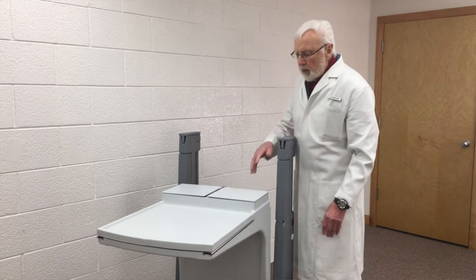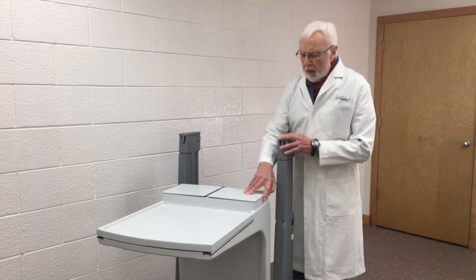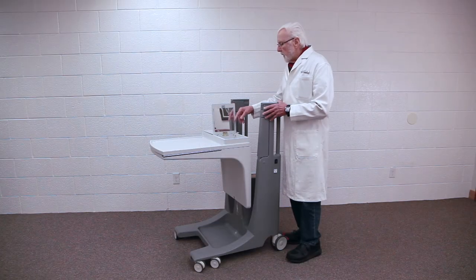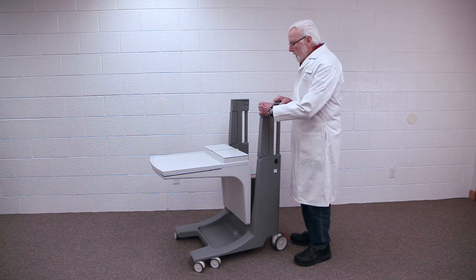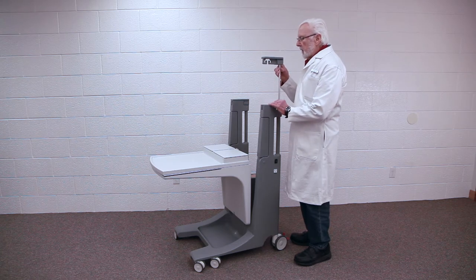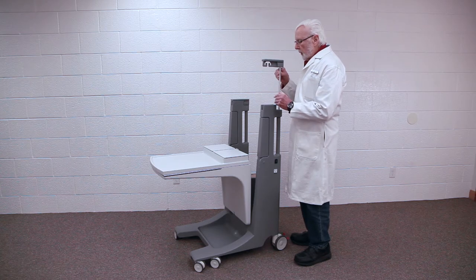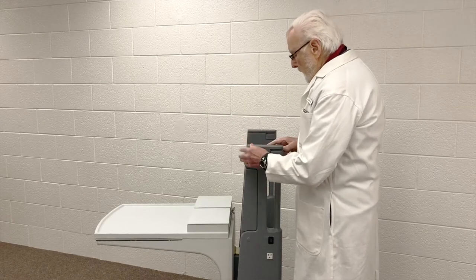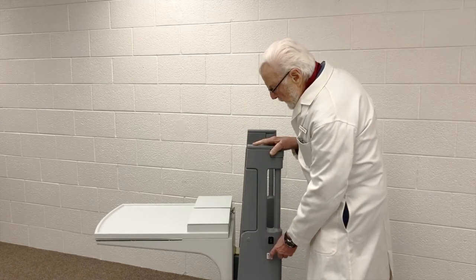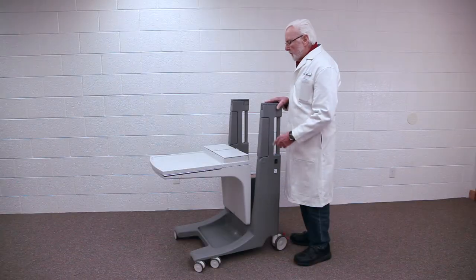You'll notice these areas here — this is a little storage space for the patient's convenience, and of course there's a mirror. This incidentally is an IV stand, and it's double so you can have two of them, large and heavy enough to handle infusion pumps. The infusion pumps can plug into this receptacle here, and what's not shown in this prototype but would be in the real product is a USB receptacle also.